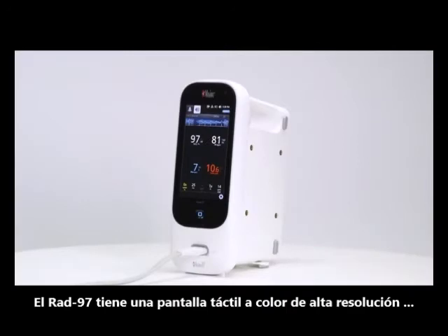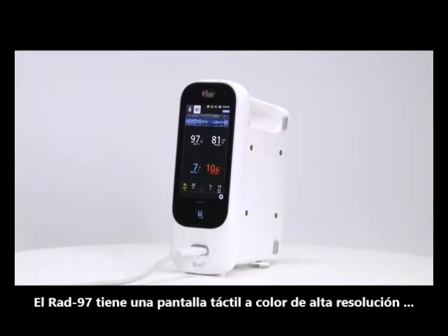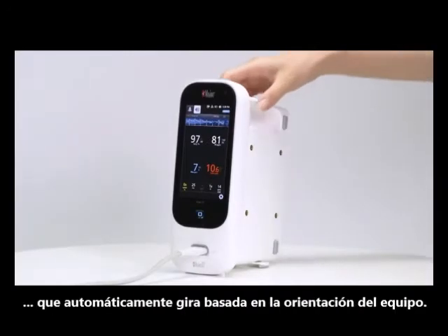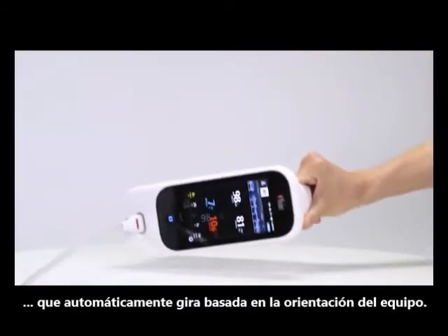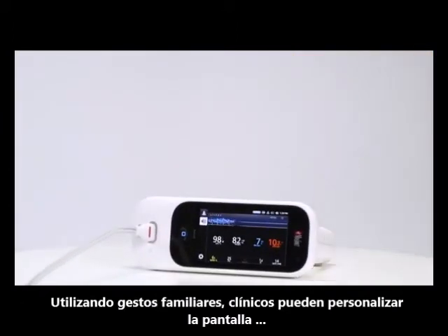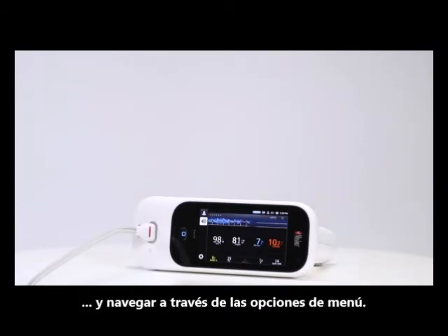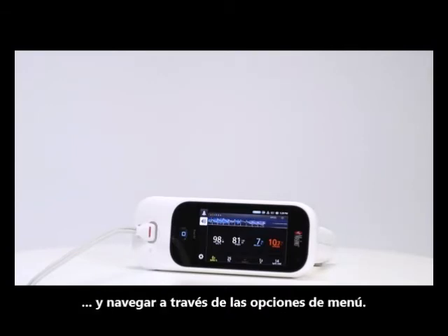RAD97 features a high resolution, color, multi-touch screen display that automatically rotates based on device orientation. Using familiar gestures, clinicians can customize the display and navigate through settings and menus.